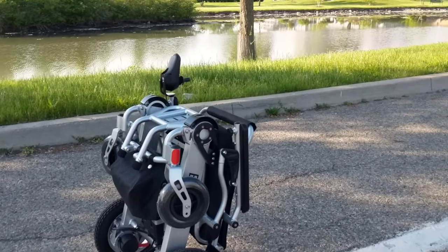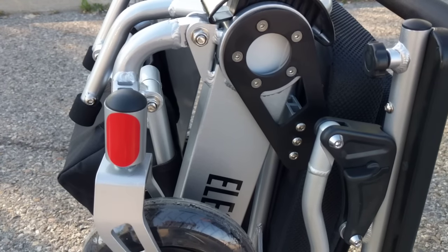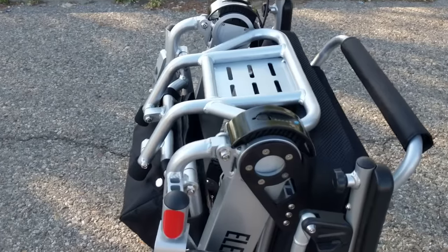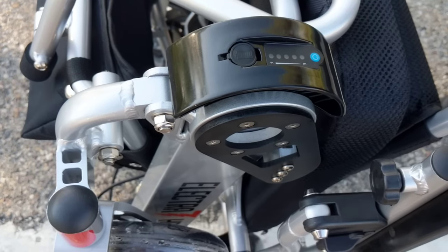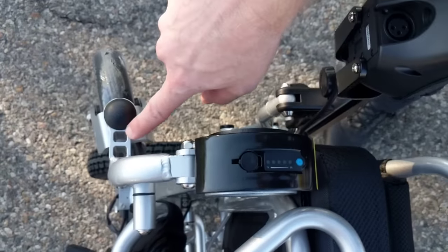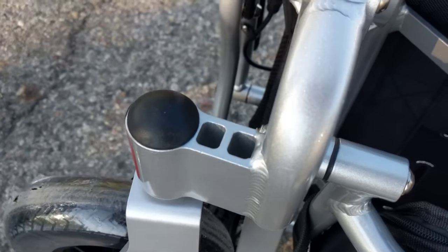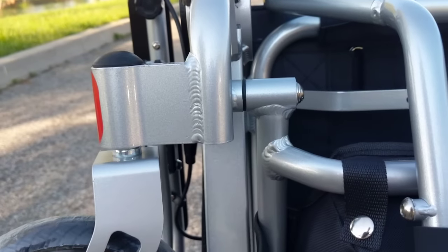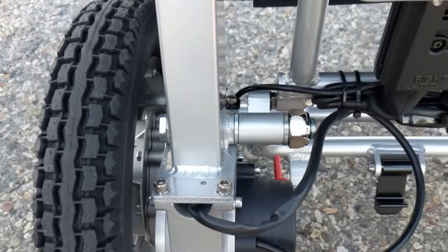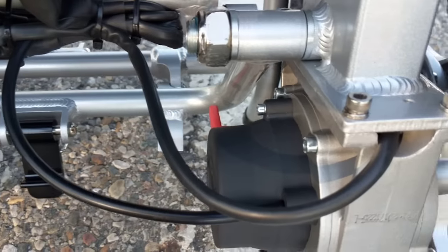While the chair is folded up, there are a couple more things to point out. The chair has multiple safety features such as the reflective tape and the casters. Look at the reinforcement here. These chairs are made from aircraft quality aluminum — very, very strong aluminum. And you can see we have heavily reinforced casters. If we take a closer look at the weld points — I can't tell you how many people who have received these chairs and have a background in welding have complimented the weld points. Look at the quality of workmanship. Very high quality chairs, very high quality components.